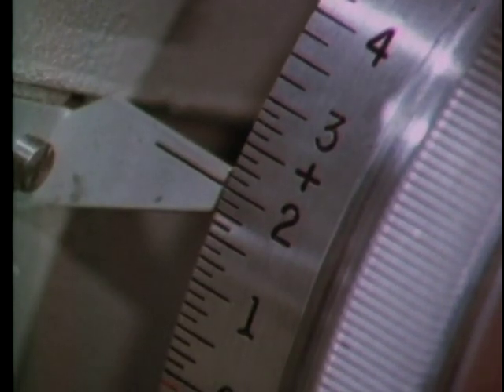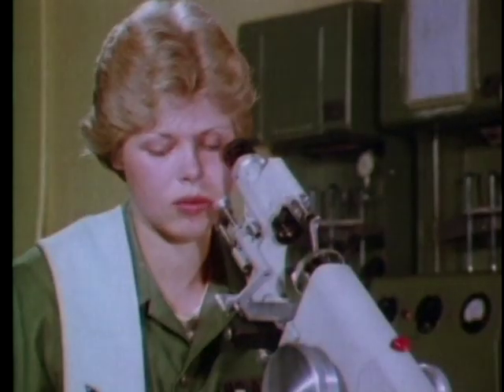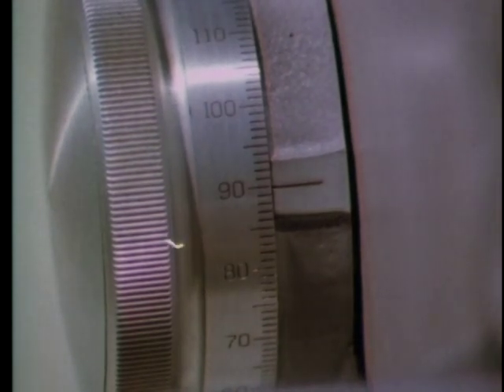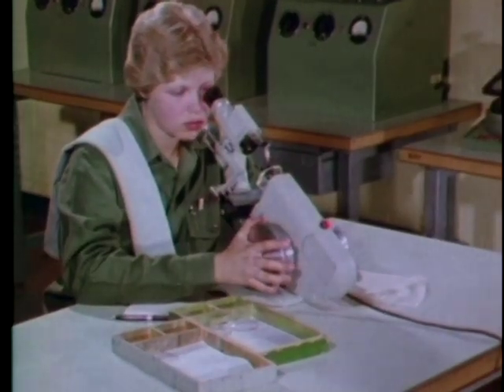Do not rotate the lens. You're now ready to record the sphere power value: plus two diopters, which is your first reading on the power wheel. You will not reset the axis wheel for cylinder power — leave it right where it is.